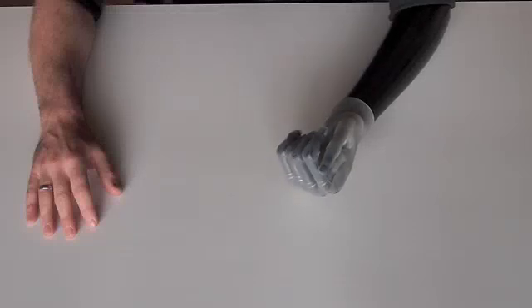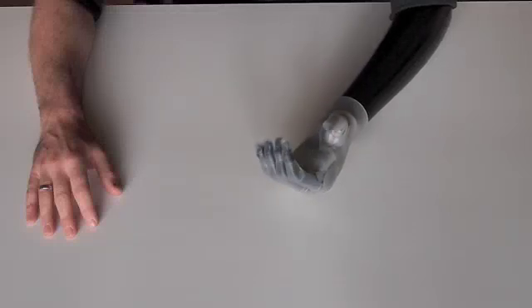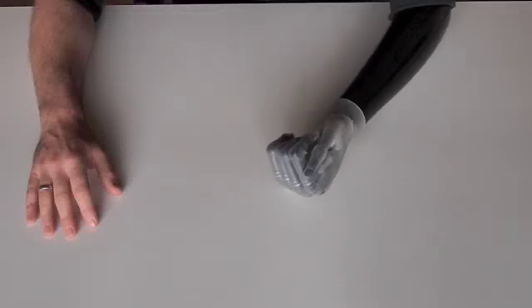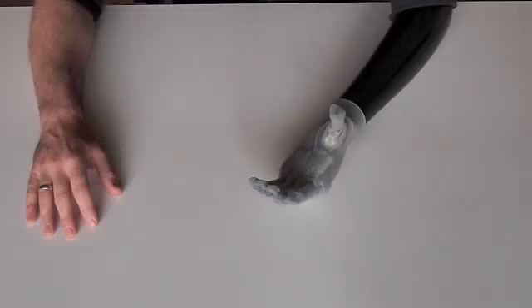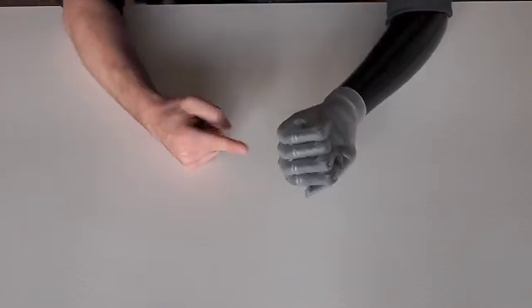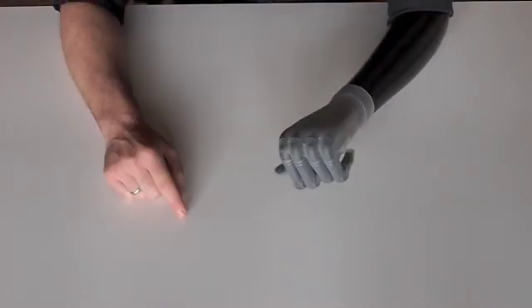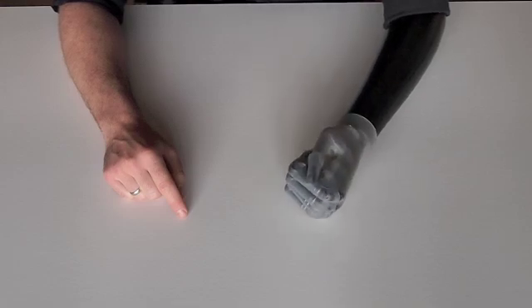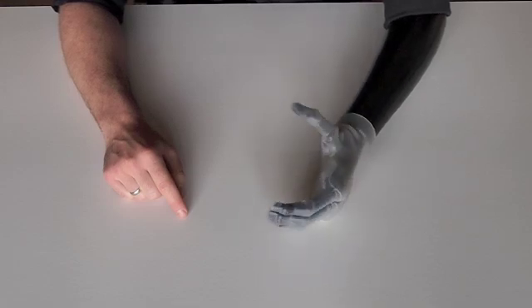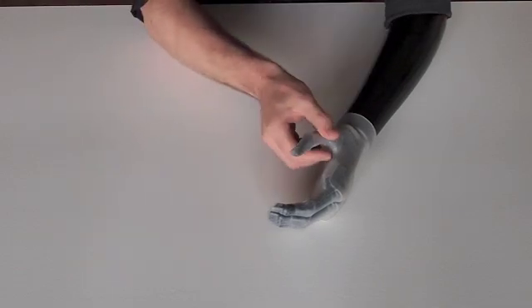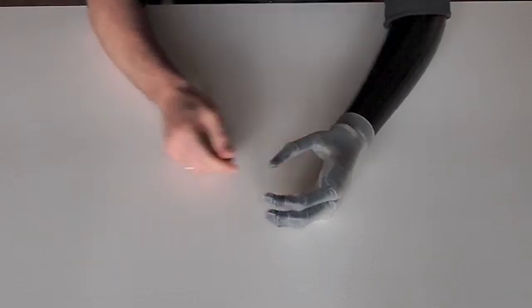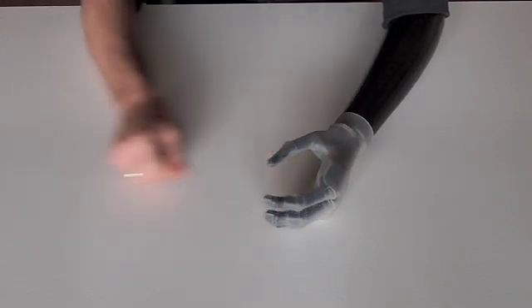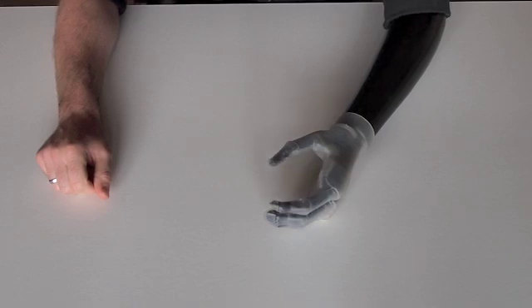In summary, I can tell the iLimb to do five different things. Each mode is associated with its own control signal, so there is no cycling through modes. Any mode can be activated from any other mode. It is the most advanced prosthesis that I have ever had, and it has drastically improved my quality of life.